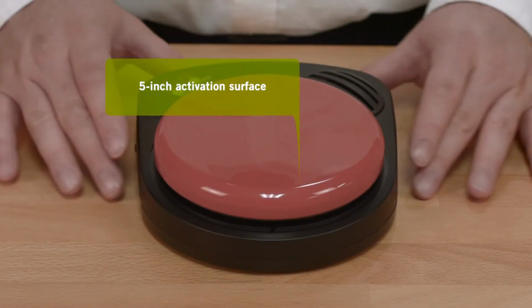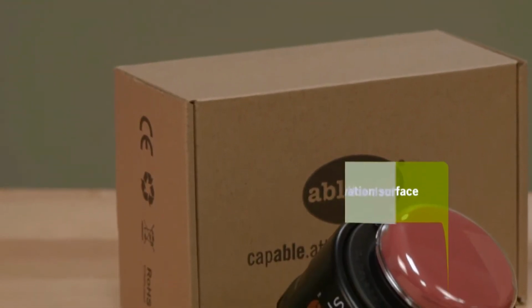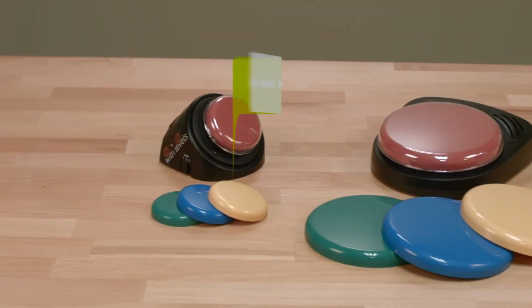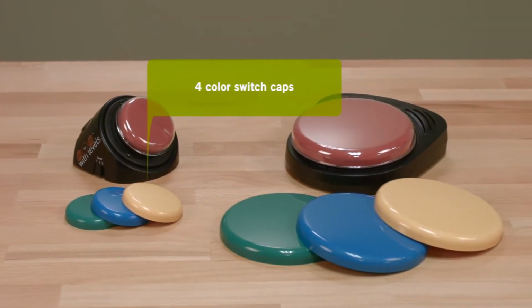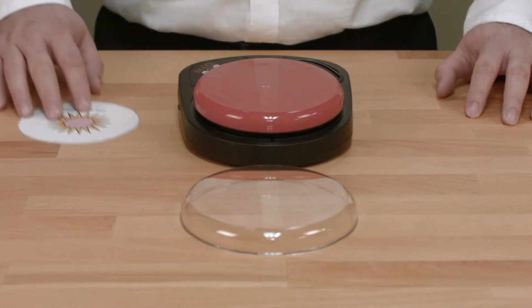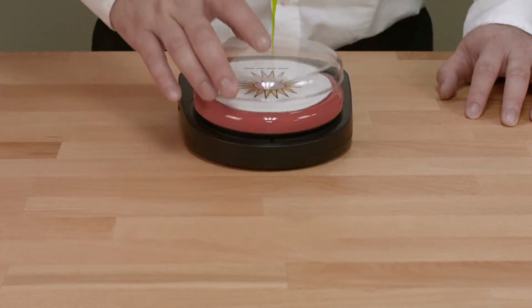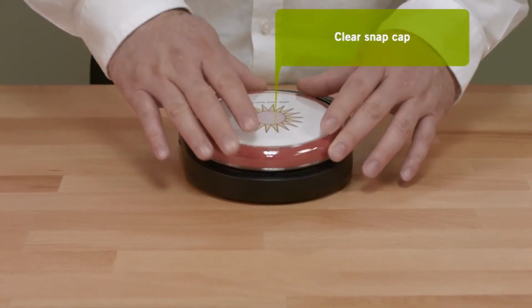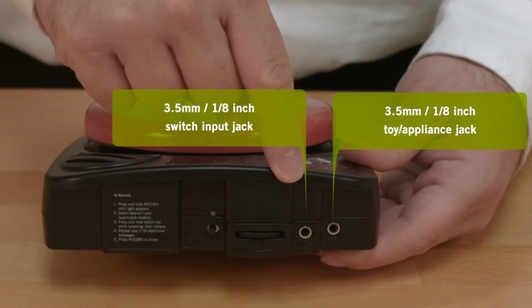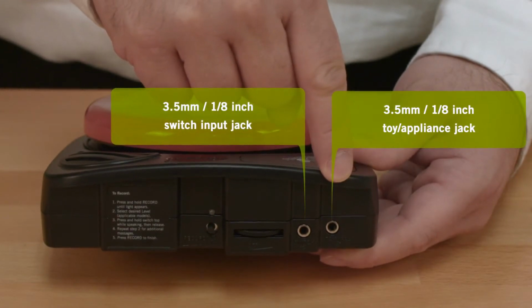The big step-by-step with levels features a large 5-inch activation surface, while the little step-by-step with levels features a smaller 2.5-inch activation surface. Both devices include 4 colored switch caps that can easily be changed to meet the needs of the user. A clear snap cap that attaches to the colored switch top is included and is used to attach a picture symbol to the device to help reinforce what will be said when the switch top is activated. A 3.5mm 1/8-inch switch input jack and toy appliance output jack are included on both devices.